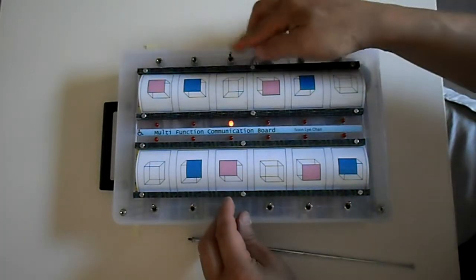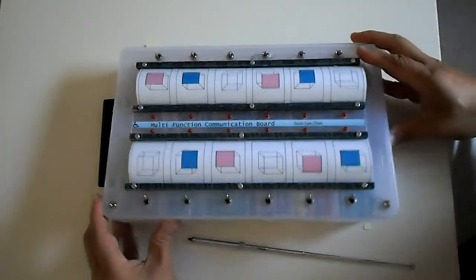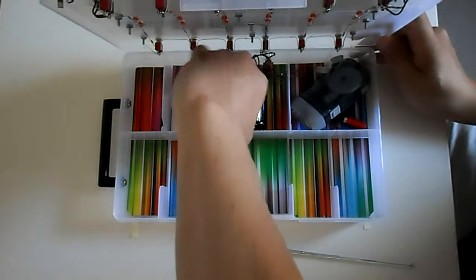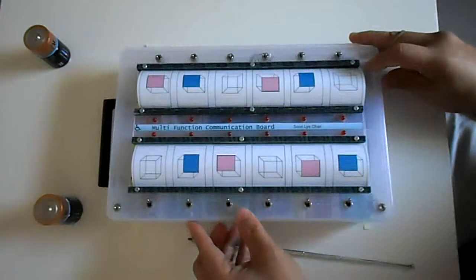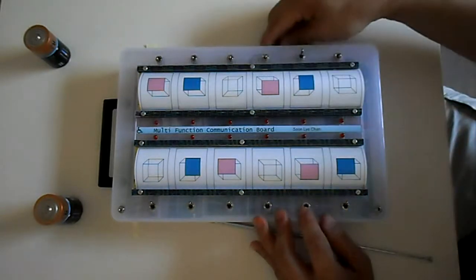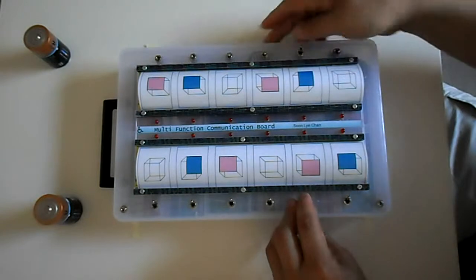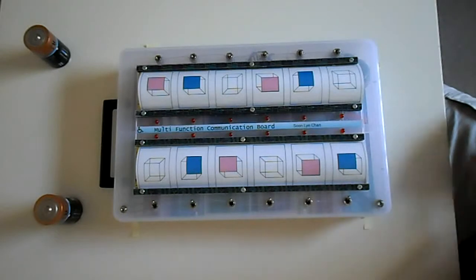The other thing to take note of as well is this device currently runs on 2 D-cell batteries, and they will last literally a year. I'm going to remove the batteries now. Put it back. Click the switch. And notice the light still comes on and there are no batteries in there.